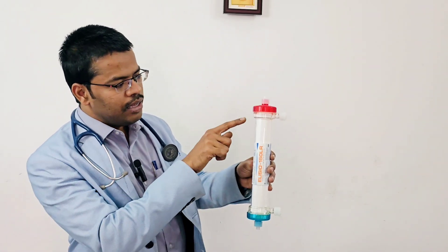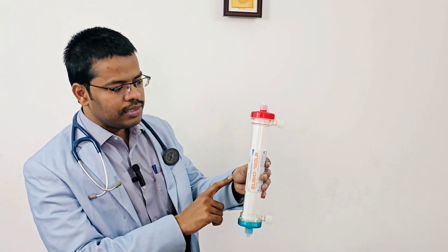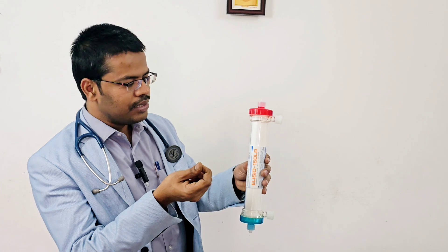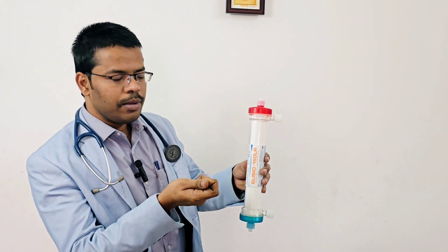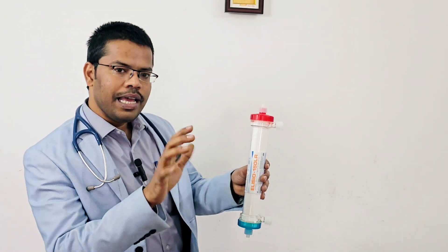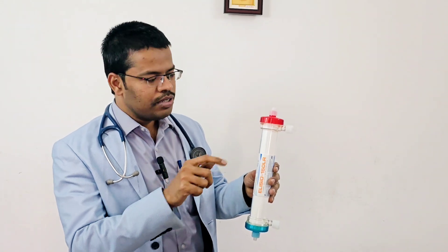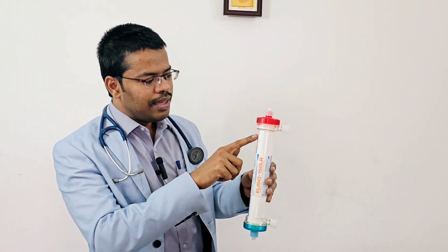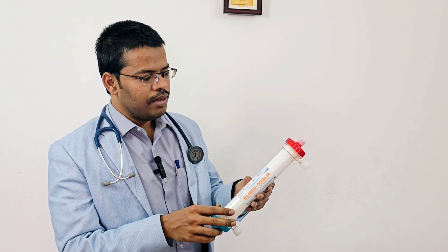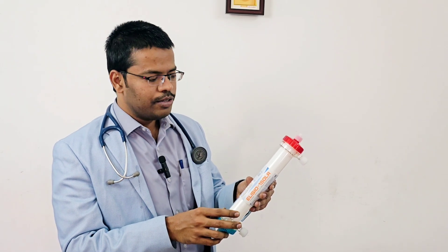Inside the dialyzer there are many micro capillaries made up of synthetic material. There are five important parameters with which the type of dialyzer can be decided, and I will explain them one by one.